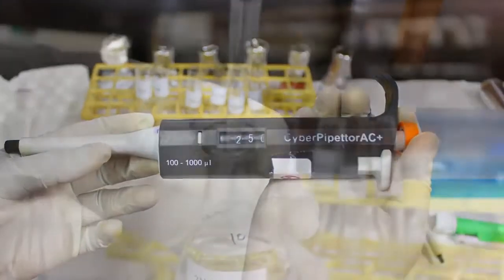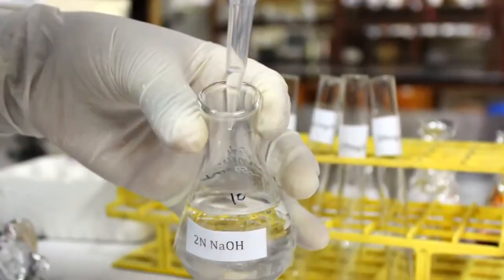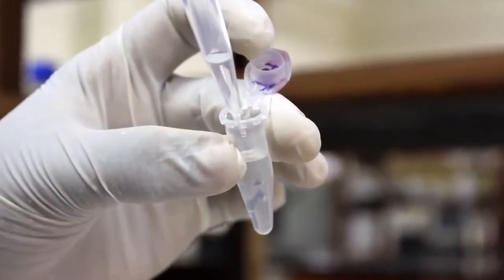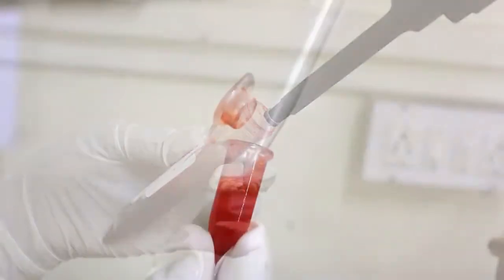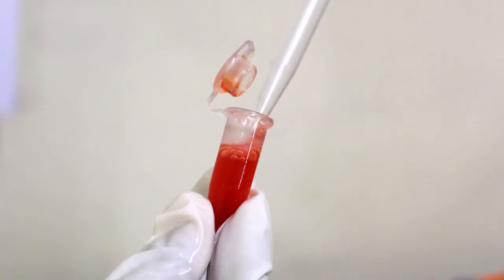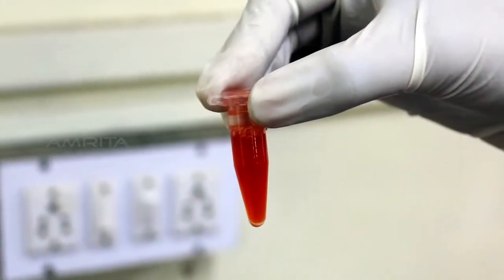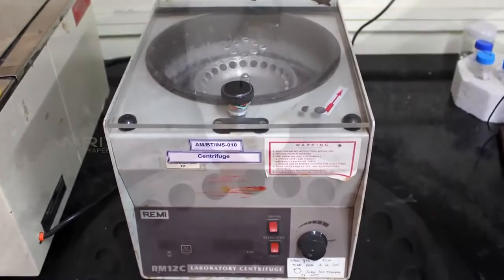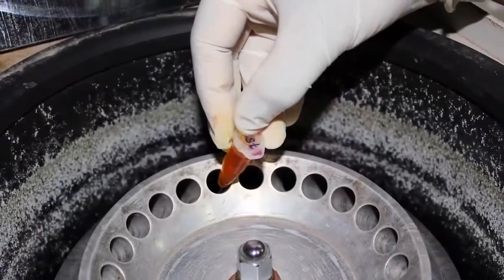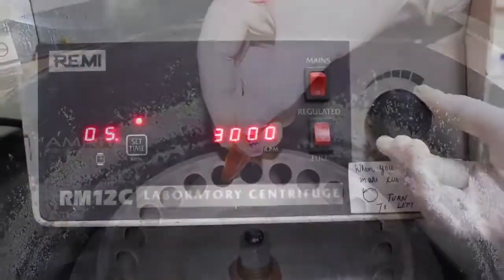Transfer 50 µL of blood sample into the same microfuge tube. Now centrifuge the sample at 3000 rpm for 5 minutes.